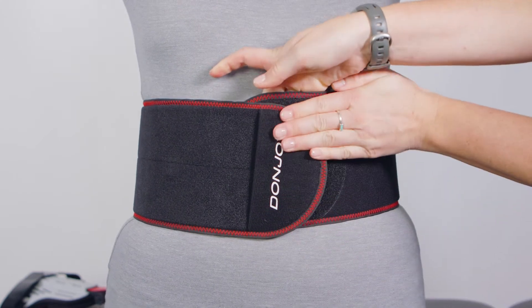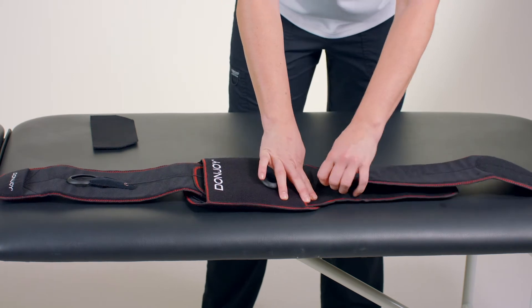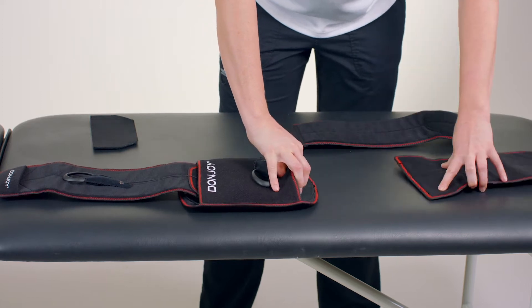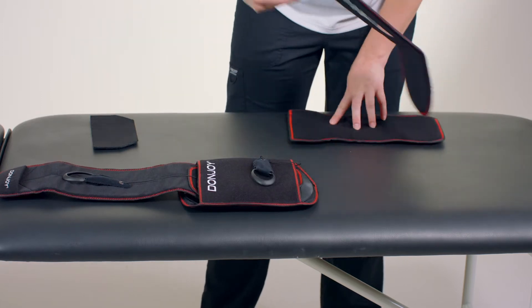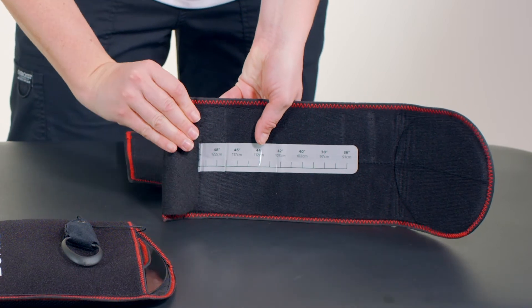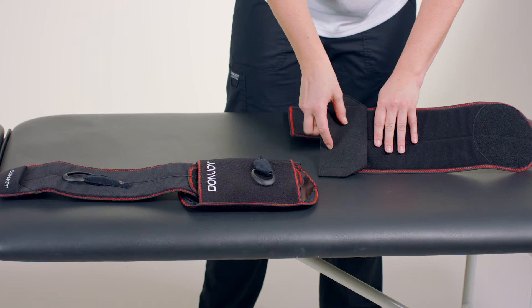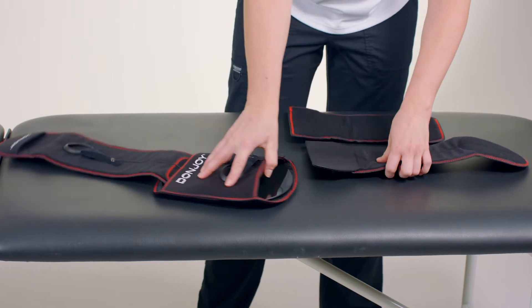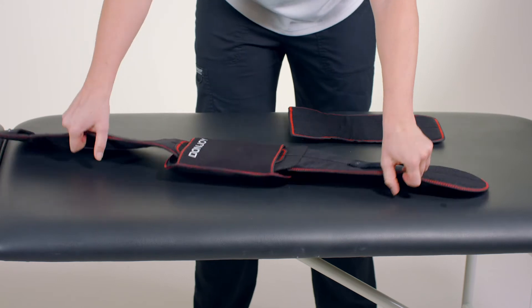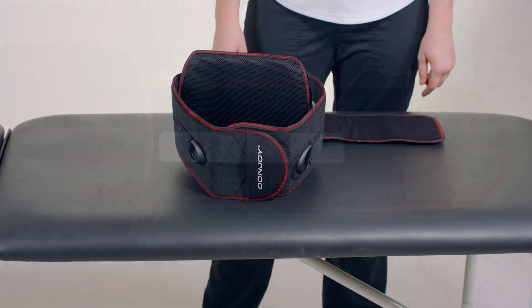Fully re-engage both components. For patients with a waist under 34 inches or less than 86 centimeters, disengage the side wings from the rear belt components. Remove and discard the side wings. Reattach the modified belt component to the rear belt component. Note: if the waist belt is trimmed, locate the two black hook and loop adapters in the packaging and attach them to the rear belt to cover any exposed hook and loop.